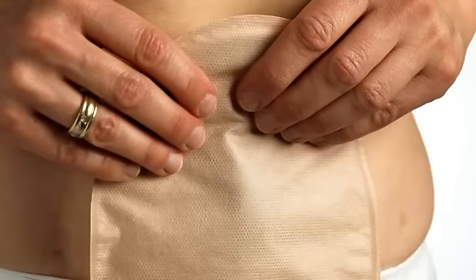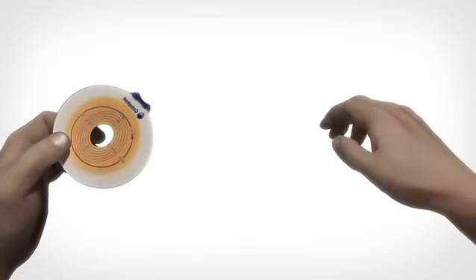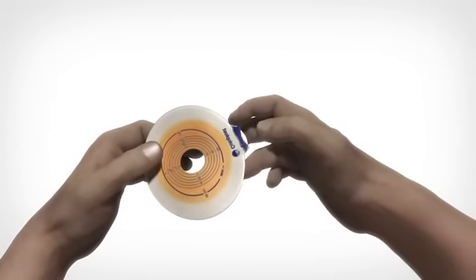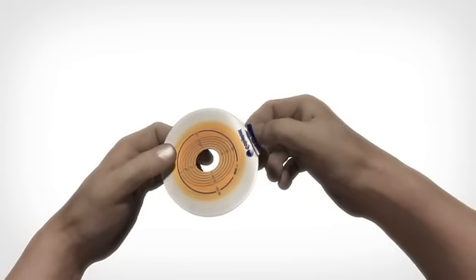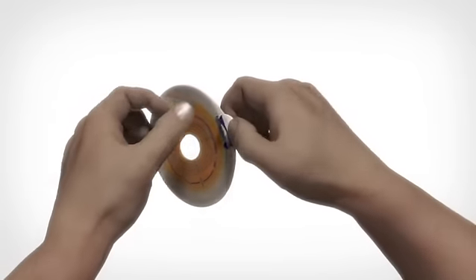Let's have a look at how to apply your ostomy appliance to keep a tight seal. Remove the protection film from the base plate by placing a thumb on the white tab on the adhesive and pull the blue release tab away from the adhesive.